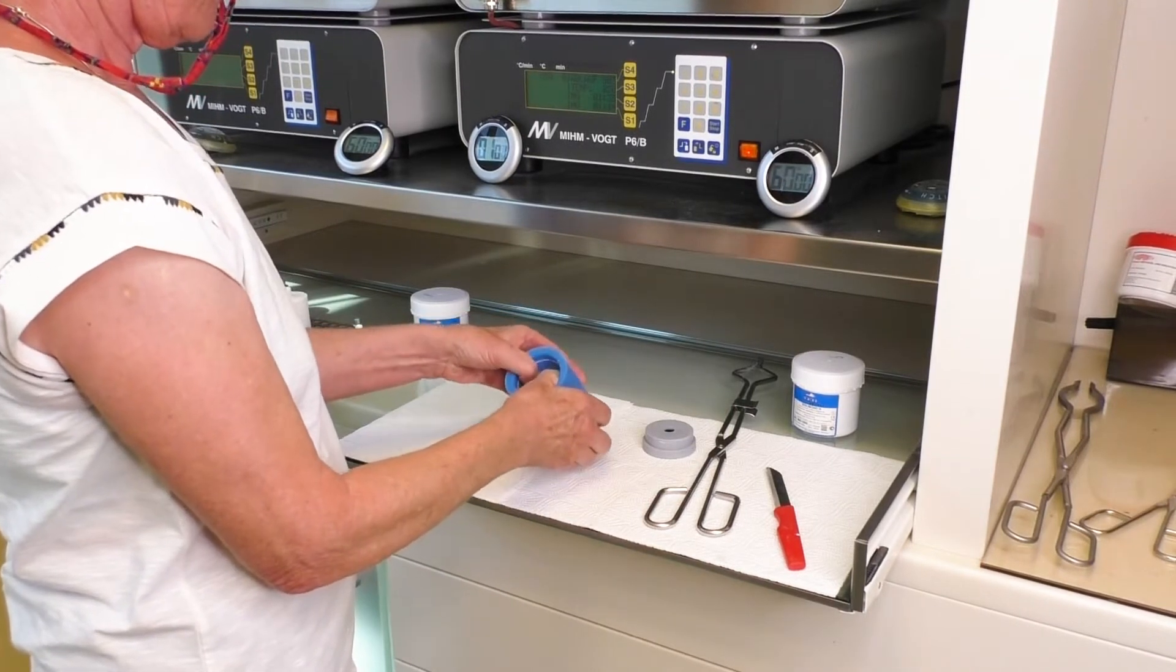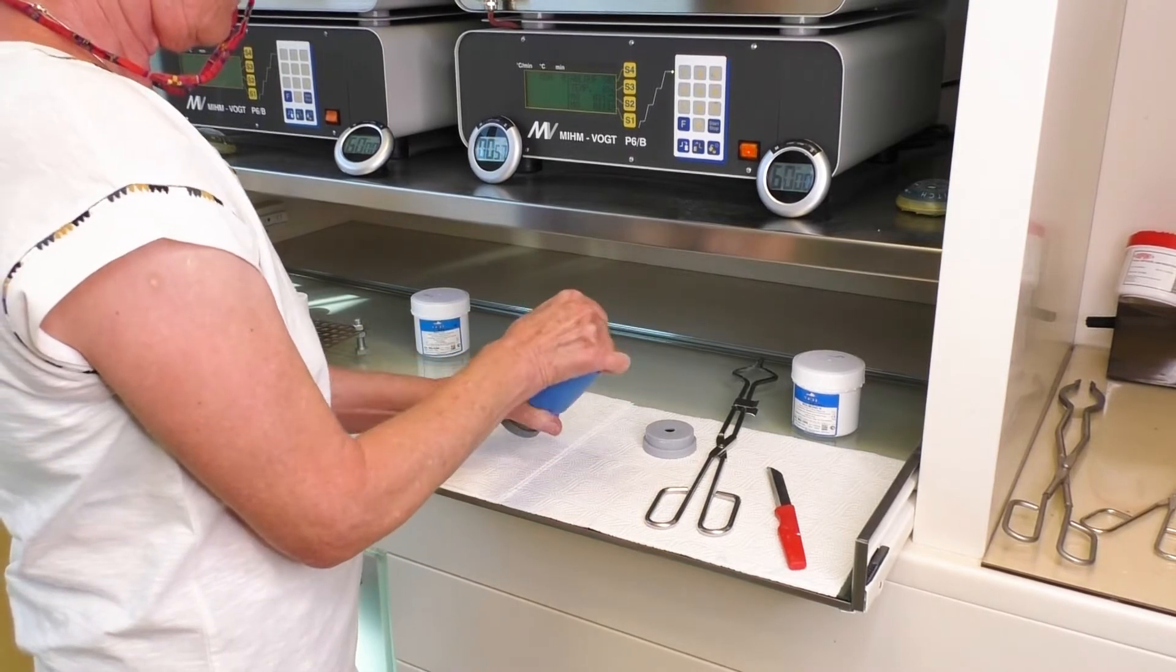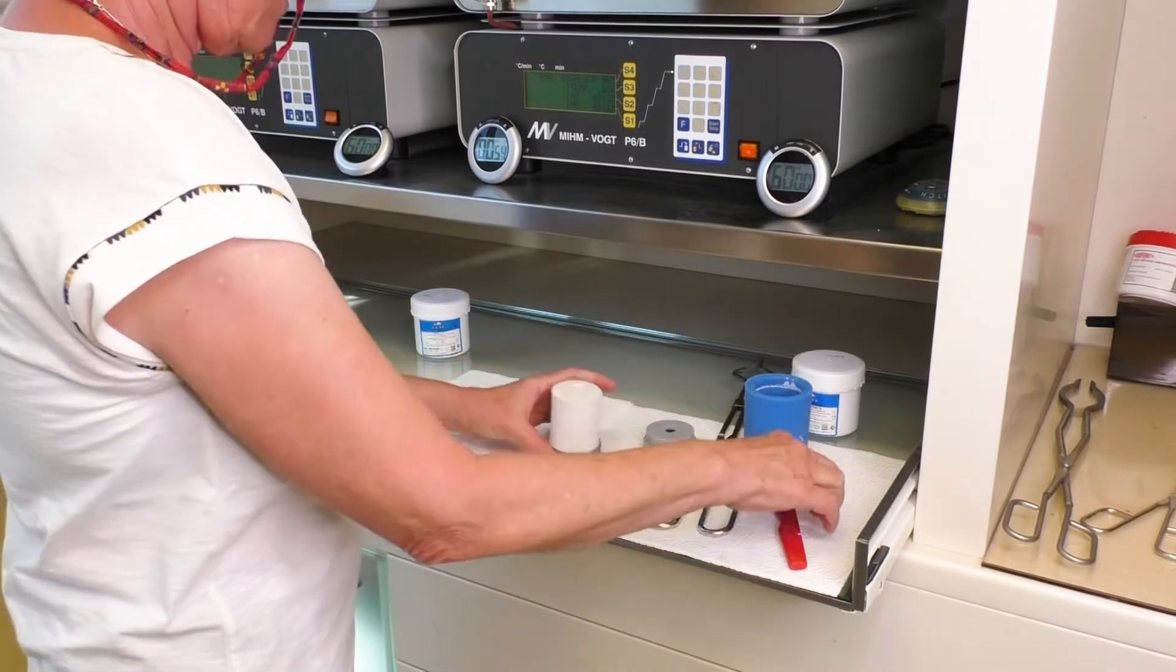Remove the silicon cylinder, base and gauge. Remove and straighten excess with a knife for better stand and degassing.